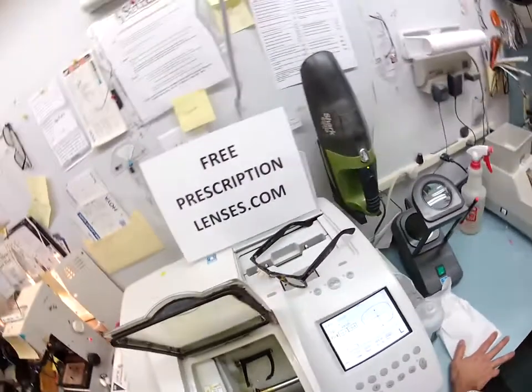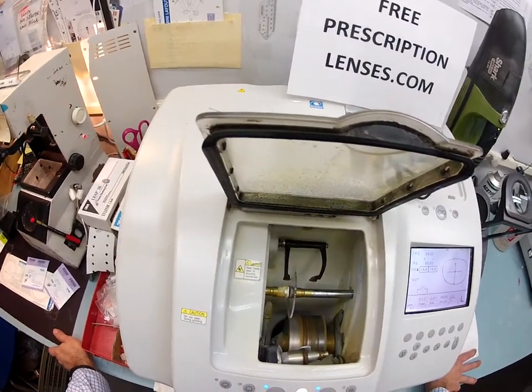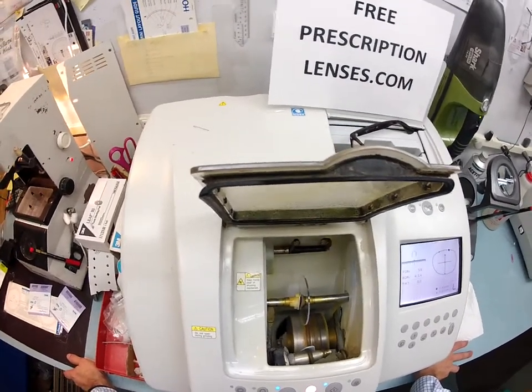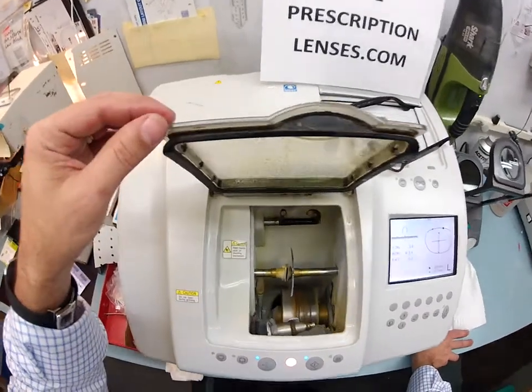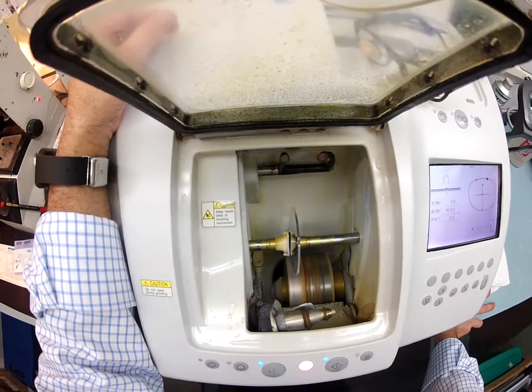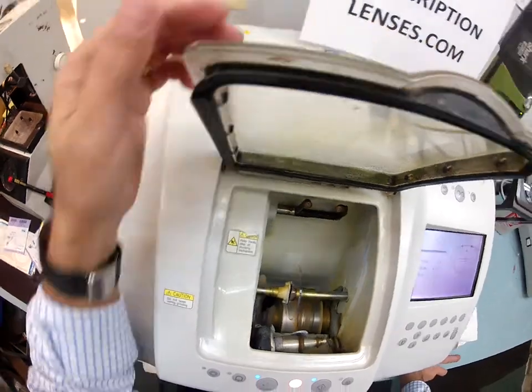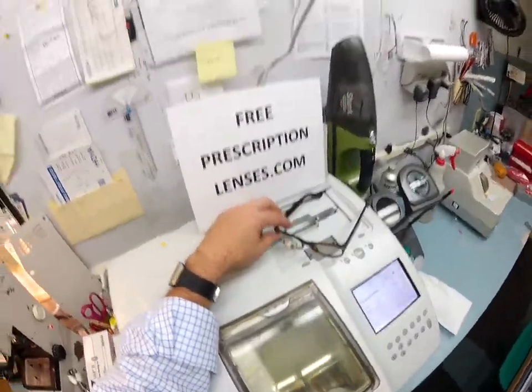Your lenses have anti-glare coating. The purpose of that is it eliminates glare when driving at night, particularly driving at night in the rain, but it also eliminates glare from street lights, stop lights, computer screens, overhead lights, and fluorescent lights. You'll notice there's water running in the background, but it's not on the lens itself — polycarbonate cuts dry, where plastic and high index lenses cut wet. That anti-glare coating is actually three features in one.